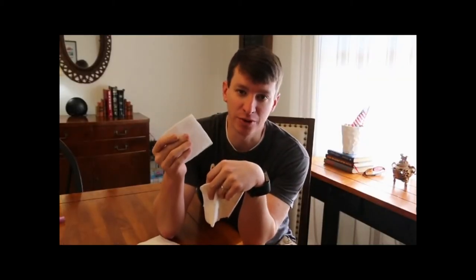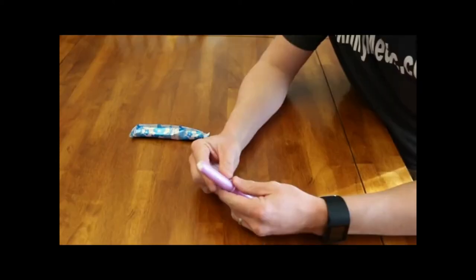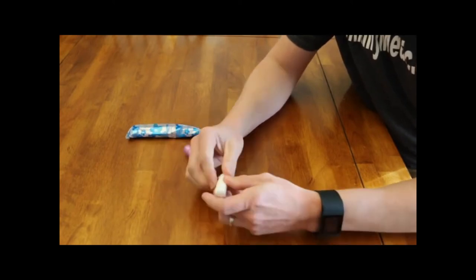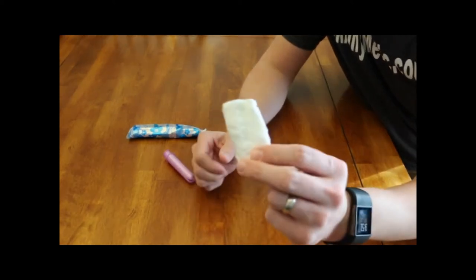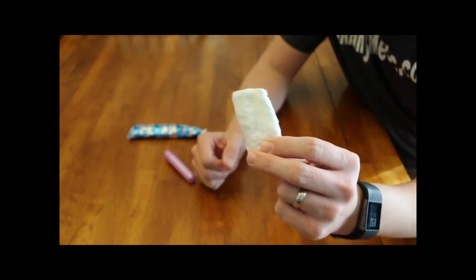The 4x4 here is for minor injuries, minor wounds — oozing blood, abrasions, things like that. It really doesn't absorb that much blood. So I've opened one up and I want to show you how much gauze is actually in here. We unroll it — and that's about it, folks. There is how much gauze is in here that people say we're going to control major bleeding with.